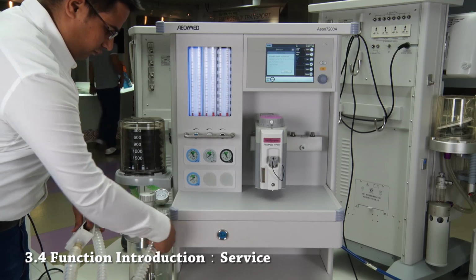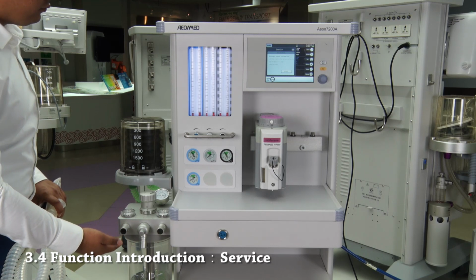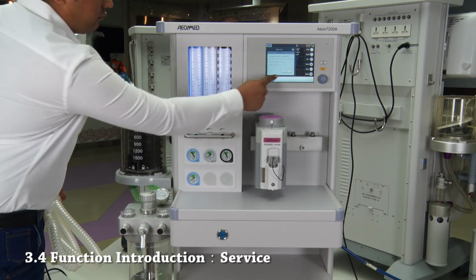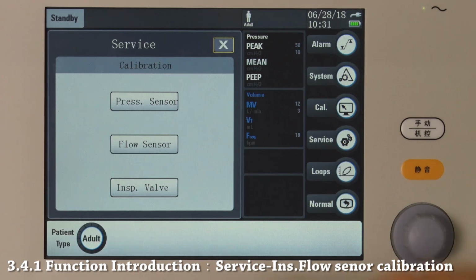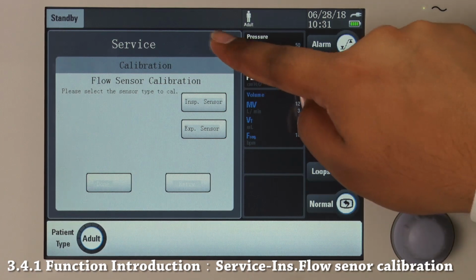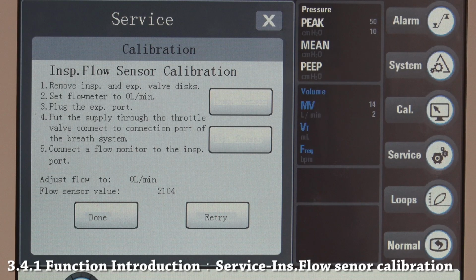First, disconnect any hoses from the inspiratory and expiratory ports. Set all flow meters to 0 liters per minute. Press start. Succeed. In flow sensor calibration, we can choose to calibrate inspiratory flow sensor and expiratory flow sensor. To calibrate inspiratory flow sensor, follow the instruction on the screen.